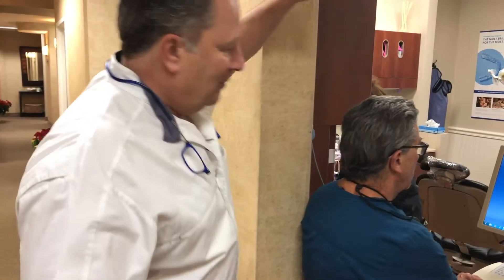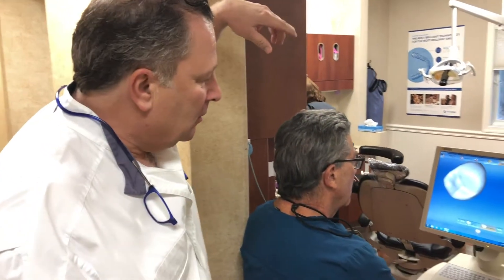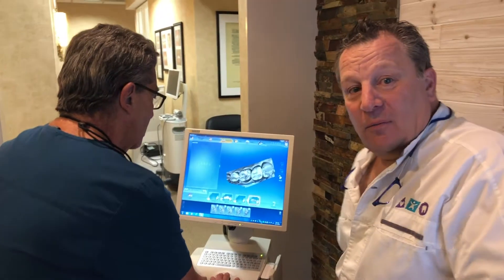Yo, Mark. How are we doing? Good. Just designing a crown for somebody here. So Mark, can you pull that out in the hallway a little bit? Are you able to do that? Very cool. So we're here with Dr. Mark Lubitz.